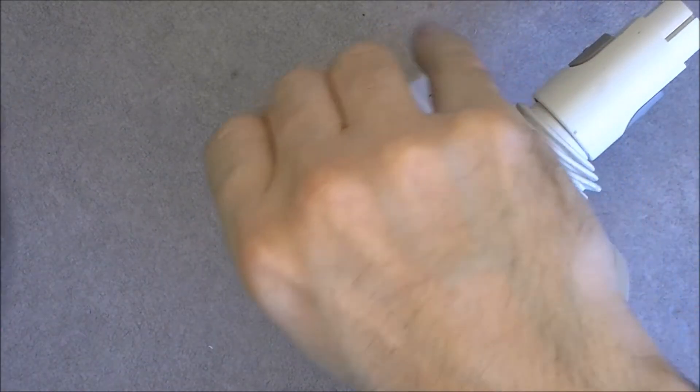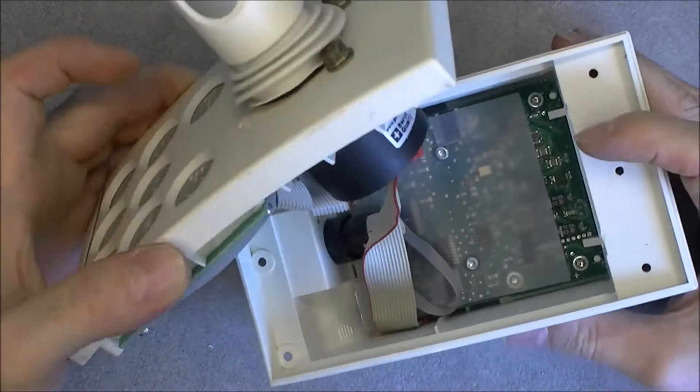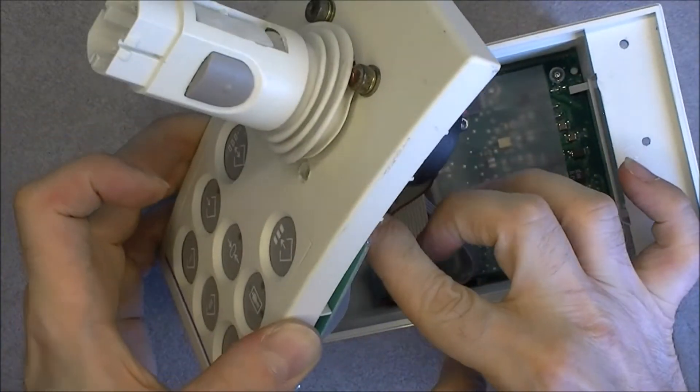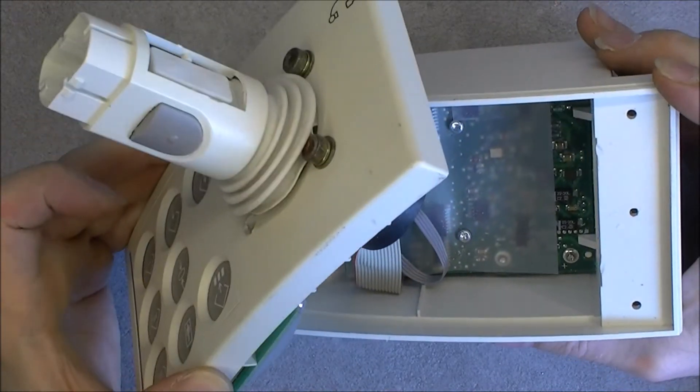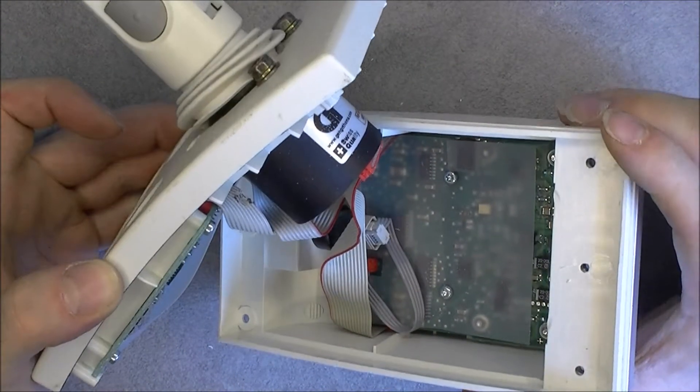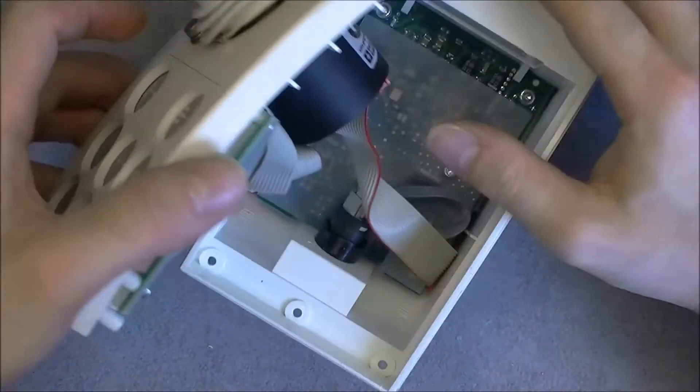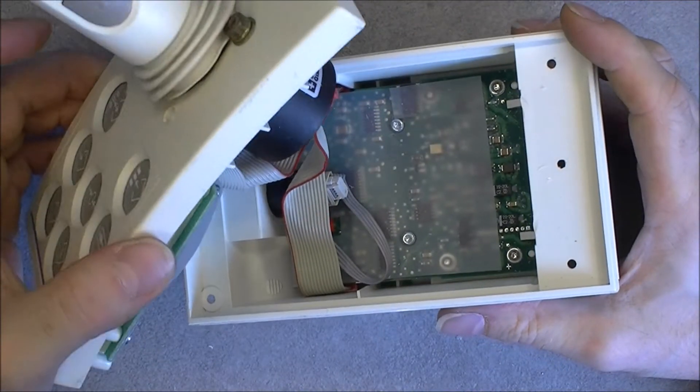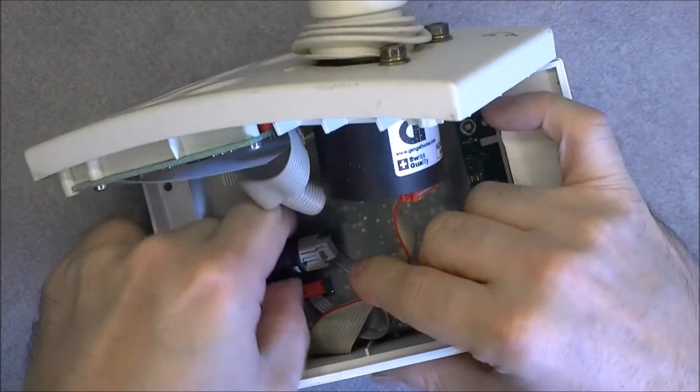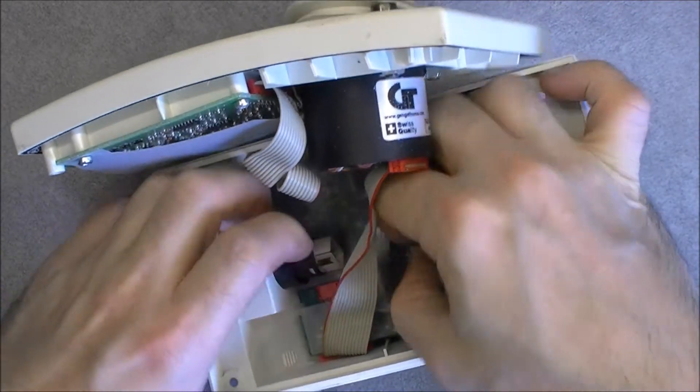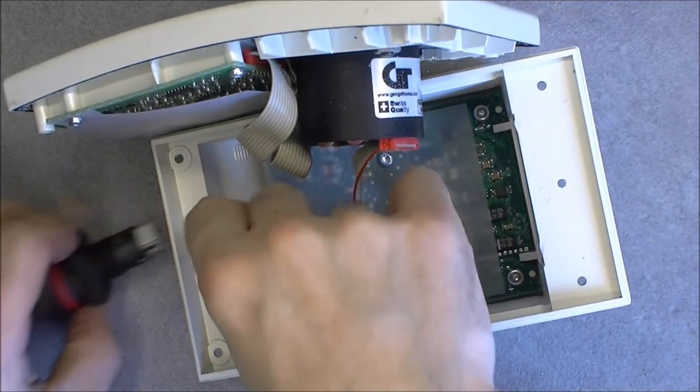They are not terribly good, these ones. Okay, so you can see the very nice stop button. One more. So what we have here, you can see, as expected, it is full of dust for some reason, this one. The cables here are damaged and it is exactly like the other one. You cannot do anything until you haven't removed the circuit at the bottom, but first you need to undo the emergency stop button, which is easy enough.